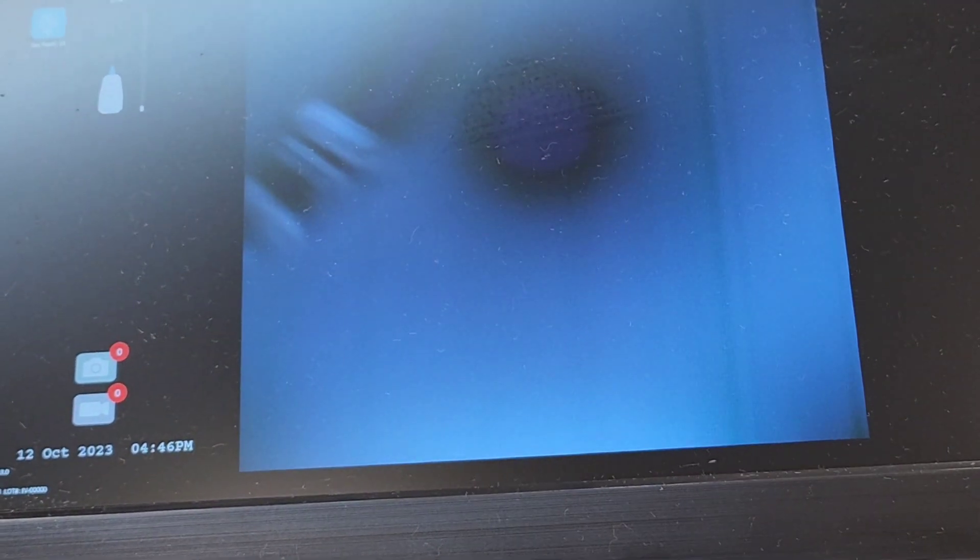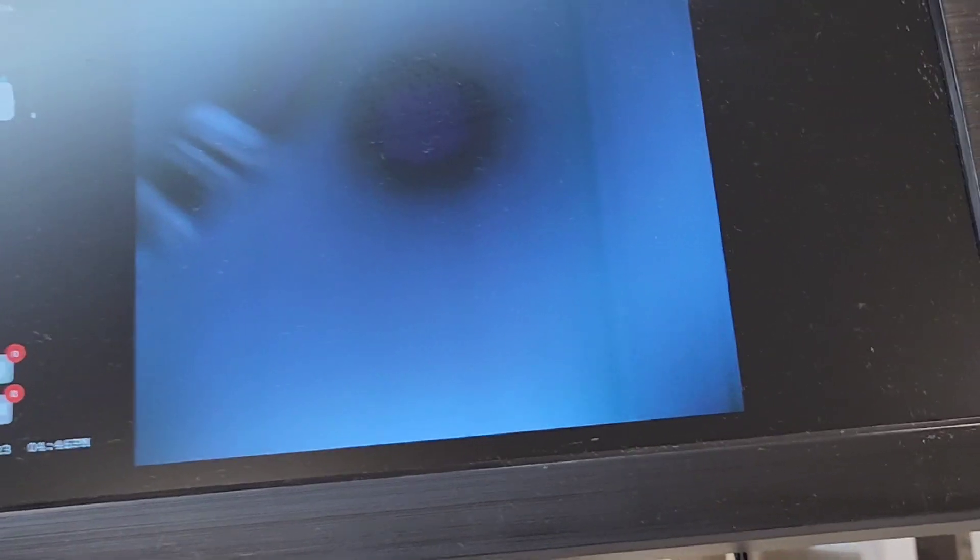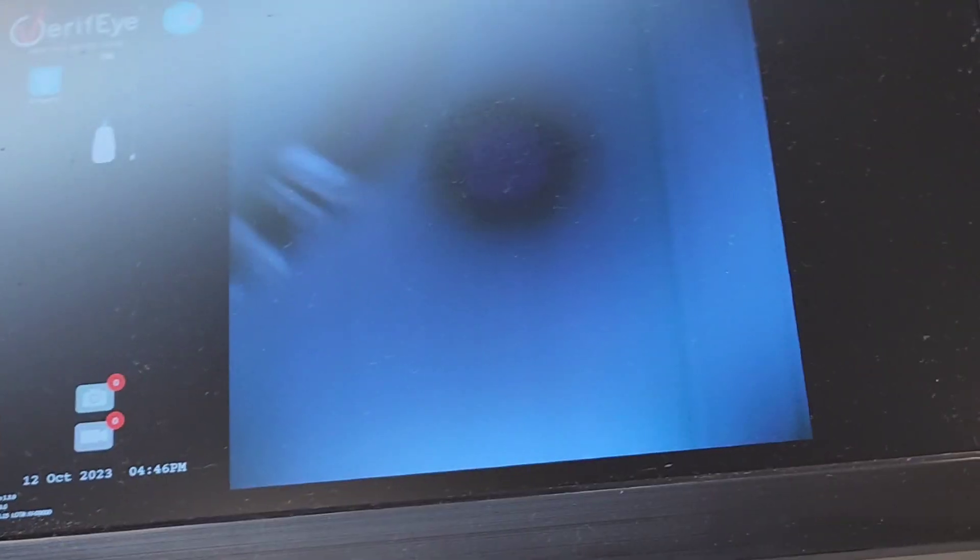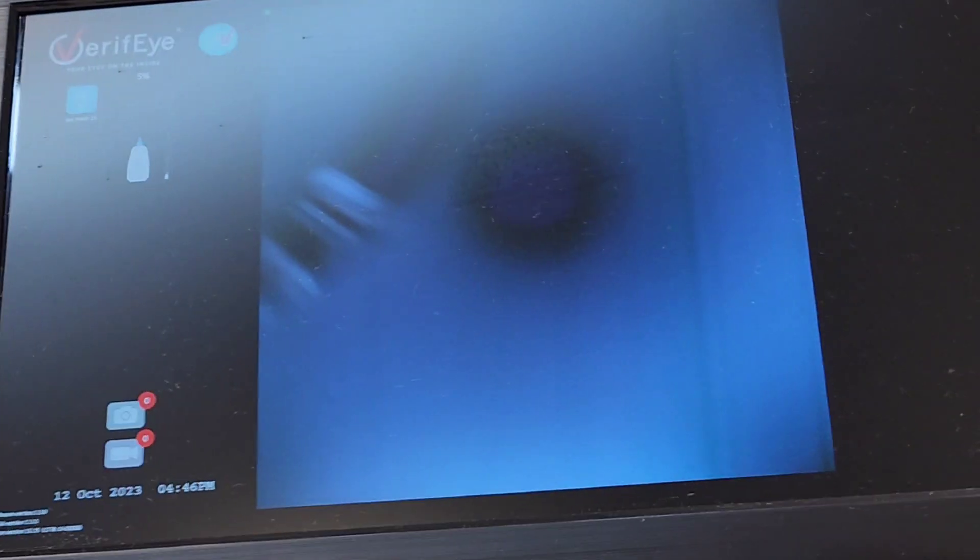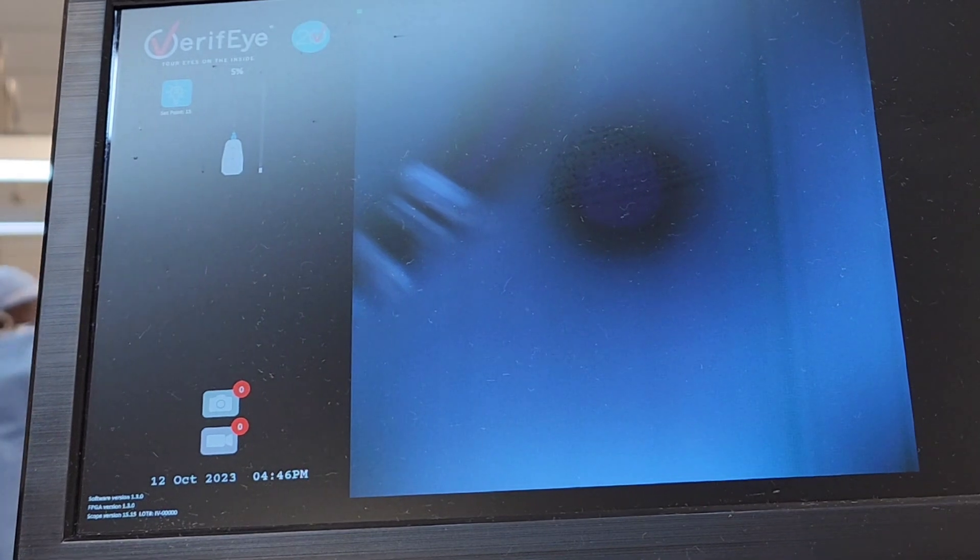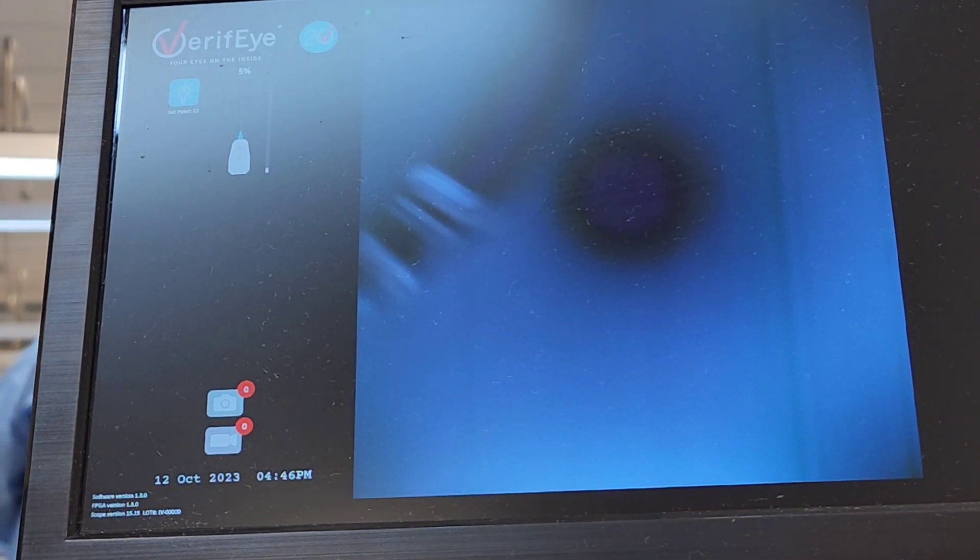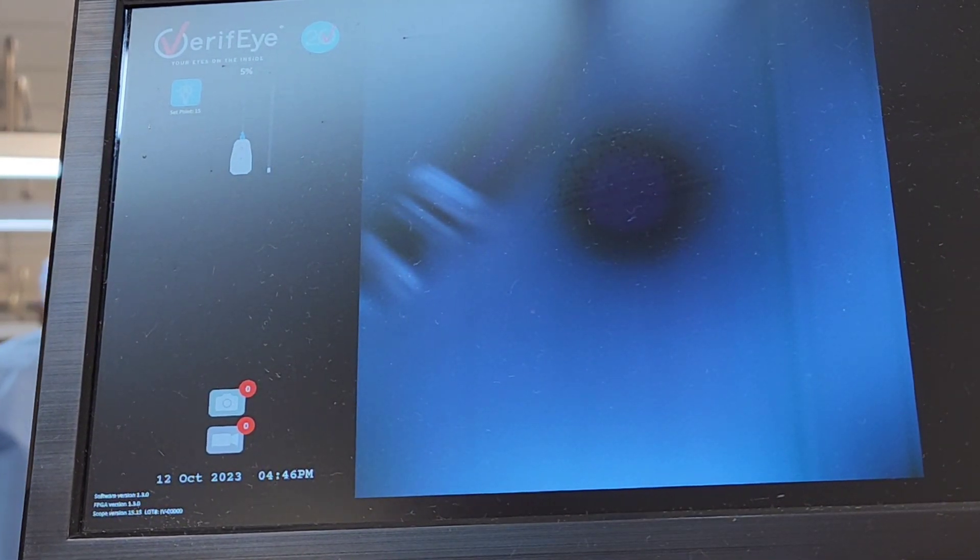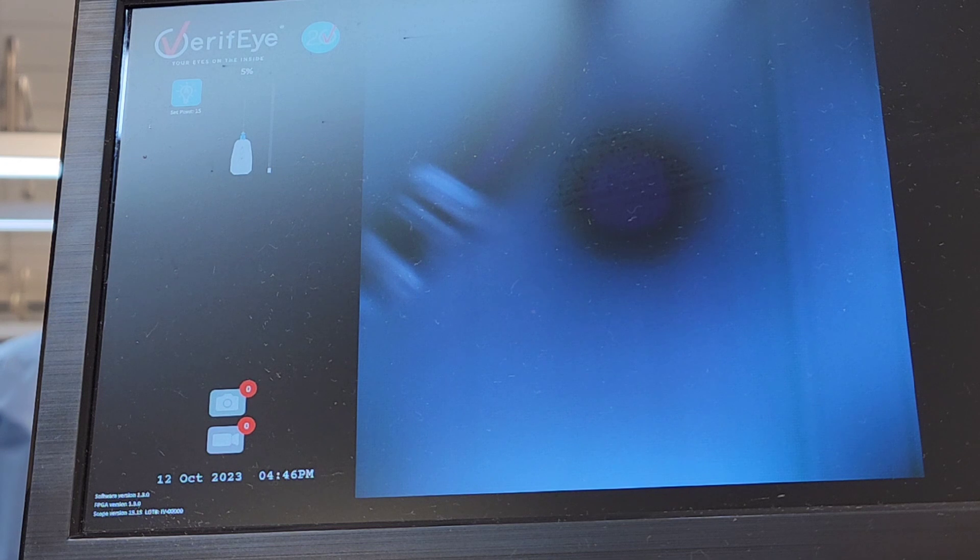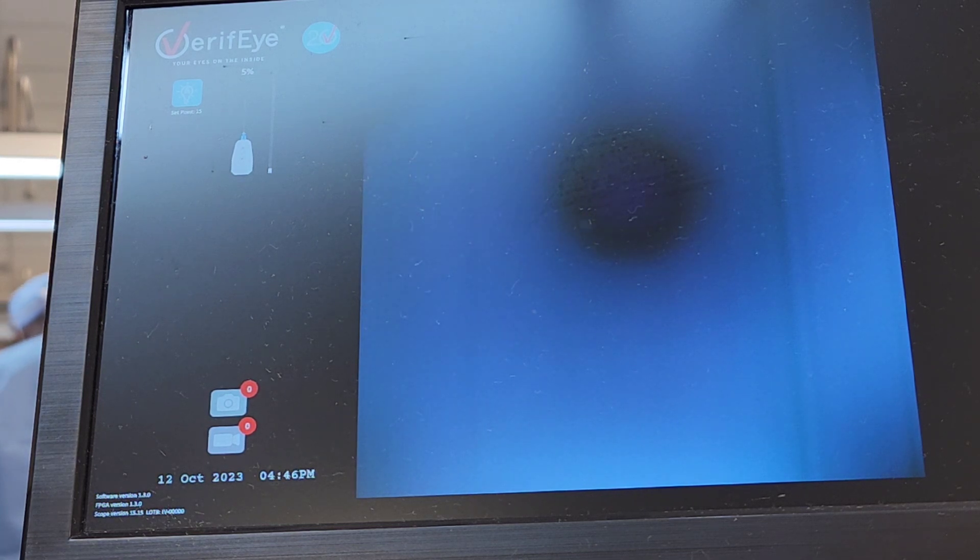As I advance, you will see that it really doesn't look like it's moving at all, which is a good thing because that means the internal lumen is very clean. There's nothing going on there, but as I advance through you'll see there's a little water droplet right there - a couple more little water droplets here and there.